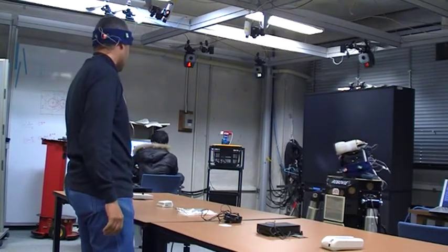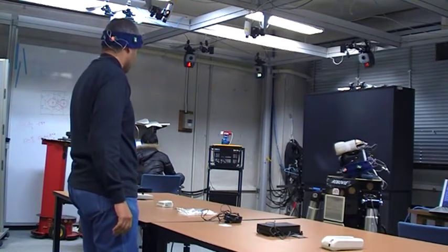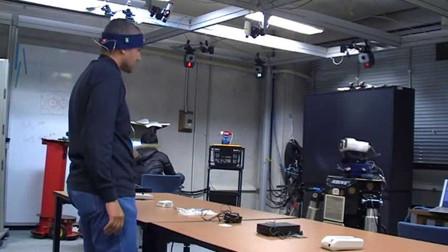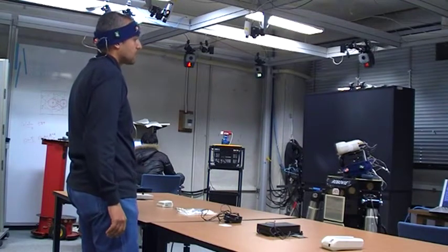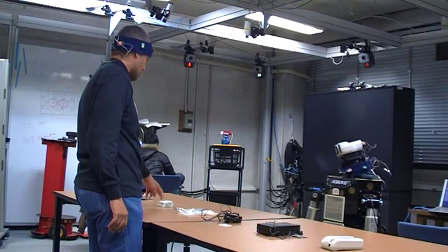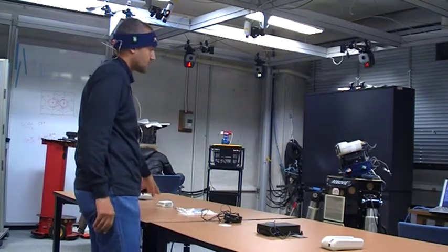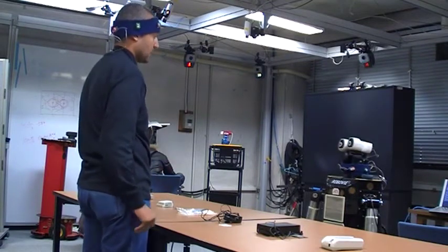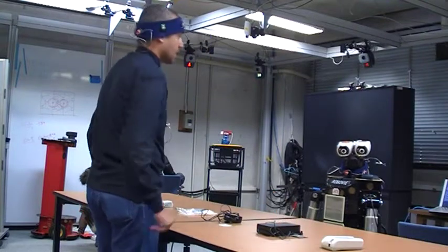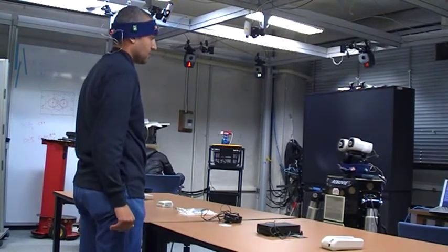This is the skin conductance sensor. You cannot use those same cables. You have to use different types of cables to measure using this device. And also this one, which is used to measure the EEG from the brain. It also needs different cables that we don't have now. So that's the main part, and you can connect it to other things like the EEG device we have here.